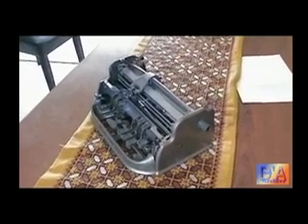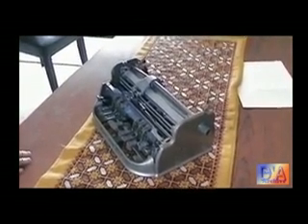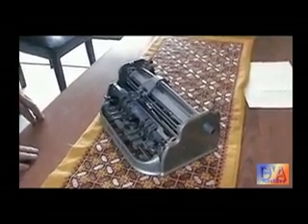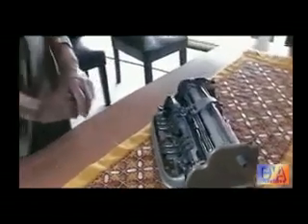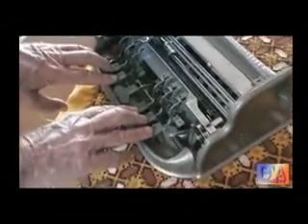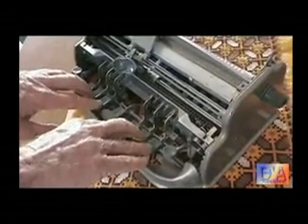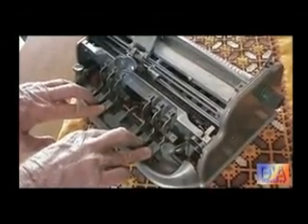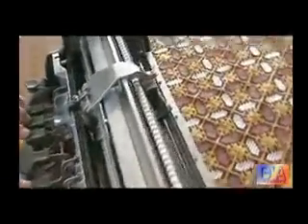Now we've got another machine — the same brand, but the cover is off. John is just going to give a brief technical overview. We have the six keys here, the space bar in the centre, and they all go down together when you press any one of the keys. And that allows the carriage of the embosser to travel one space.